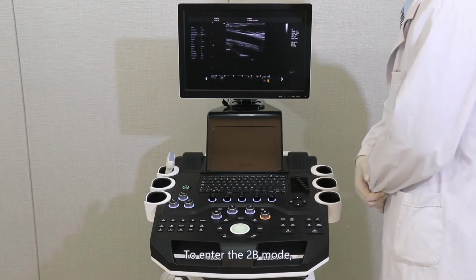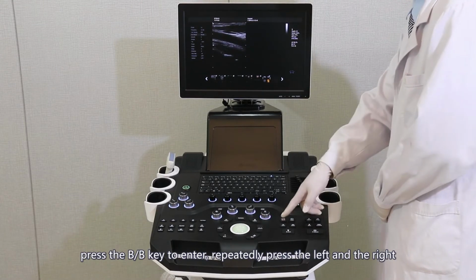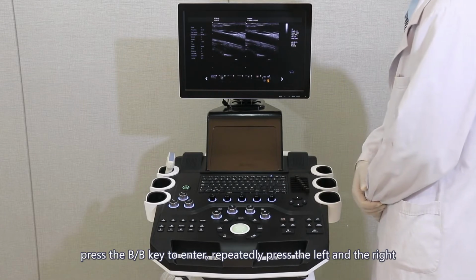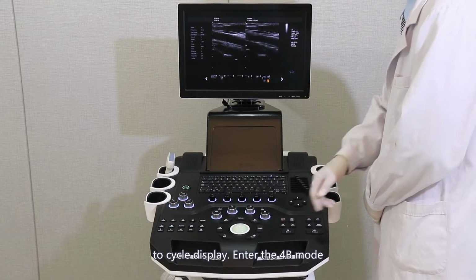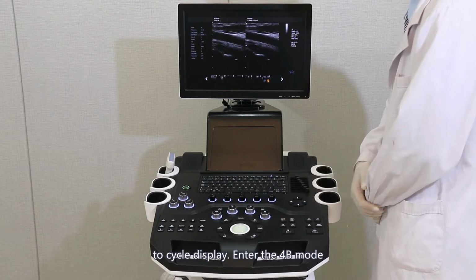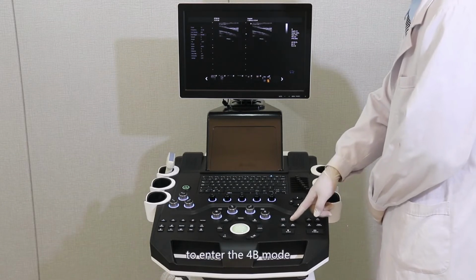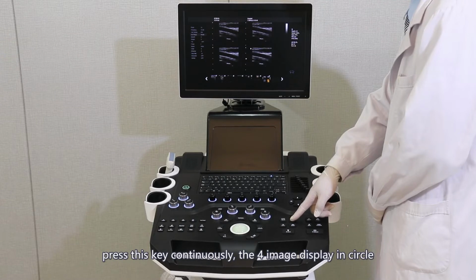To enter the 2B mode, press the 2B key. Repeatedly press the left and right to circle the display. Enter the 4B mode. Press the 4B key to enter the 4B mode. Press this key continuously to display the 4 images in a circle.